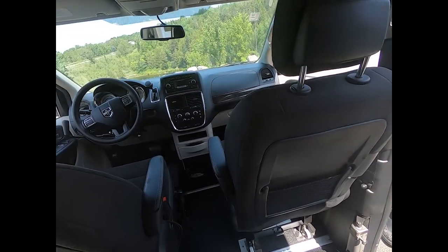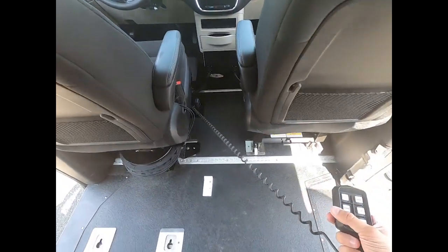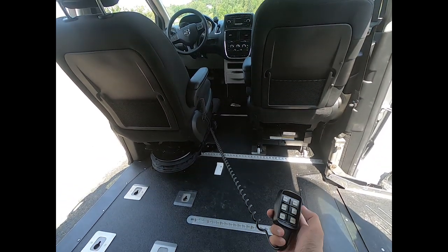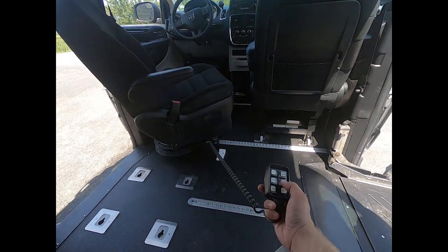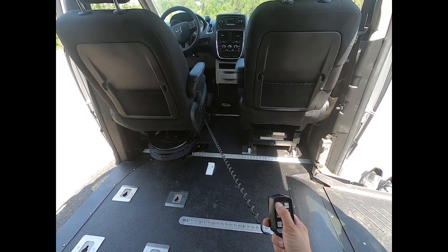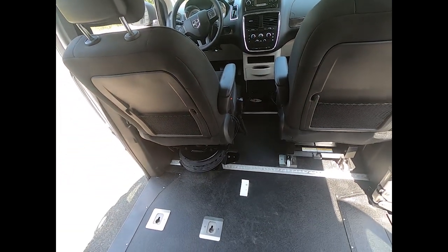Pretty cool. We also did a set of hand controls and a six-way transfer seat base. When he pulls up here in his wheelchair, you can bring the seat right back, turn it around, transfer in and out of his wheelchair however he needs to, and spin himself back around. Just like that, he's behind the wheel driving from the regular seat of the vehicle, and he's on his way.